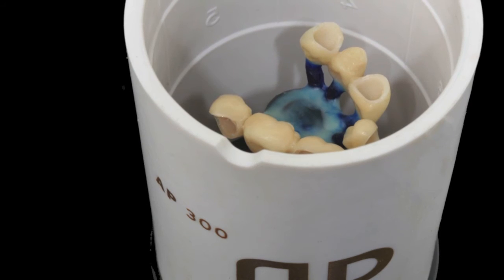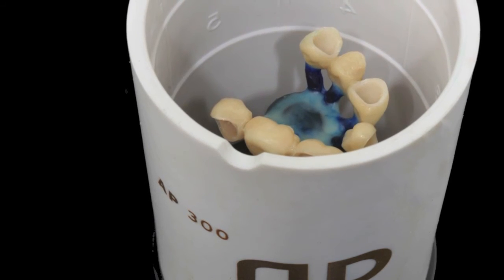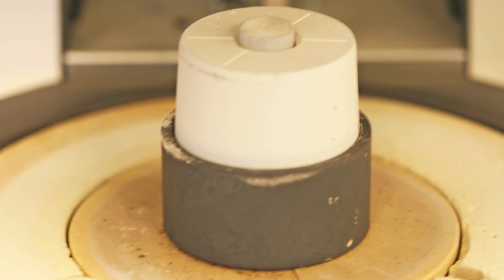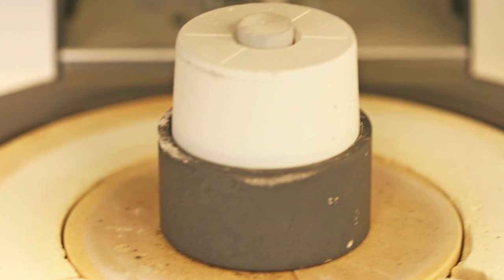The units are being invested in a tapered investment ring, the AP 300. The unique AP safety belt ensures stress-free pressing results, preventing any possibility of ring cracking.